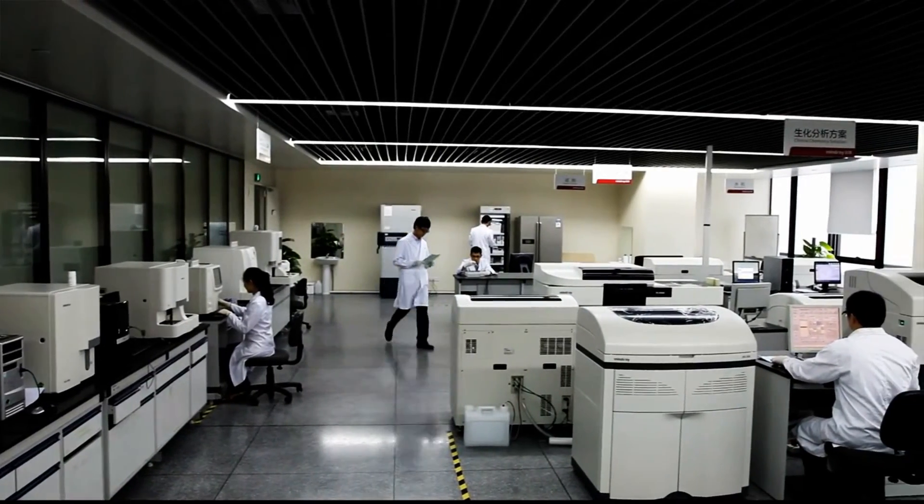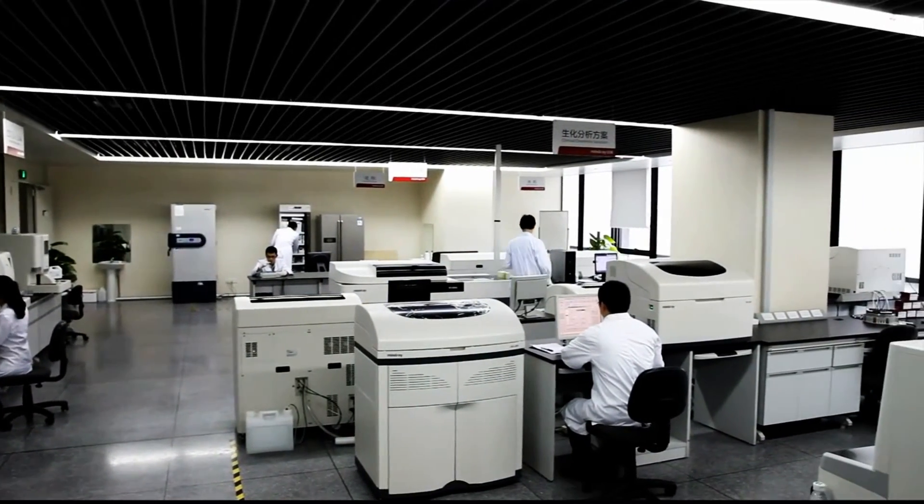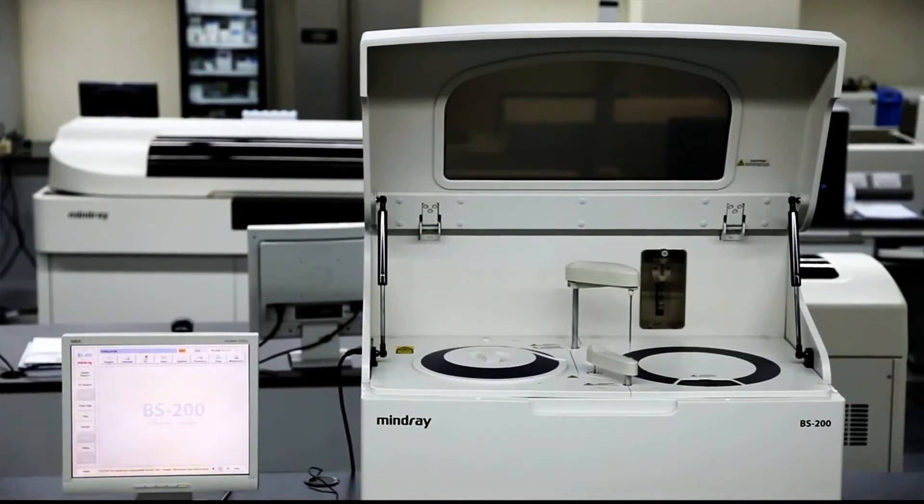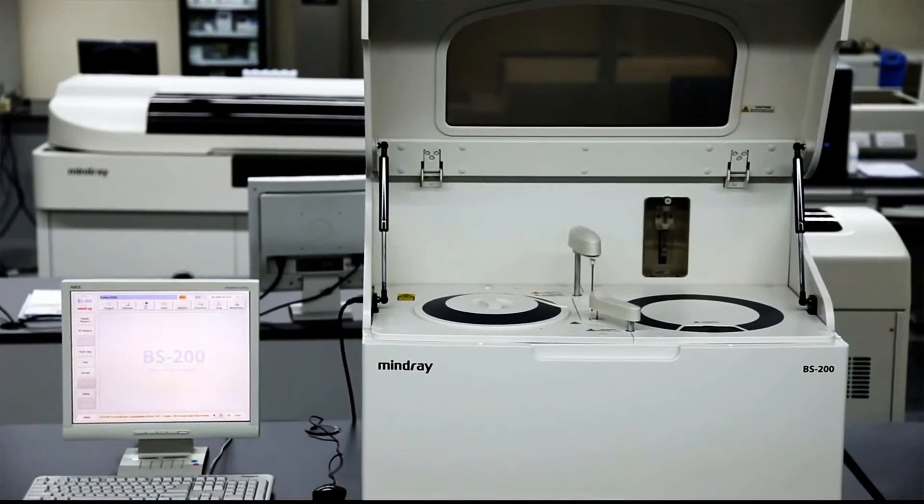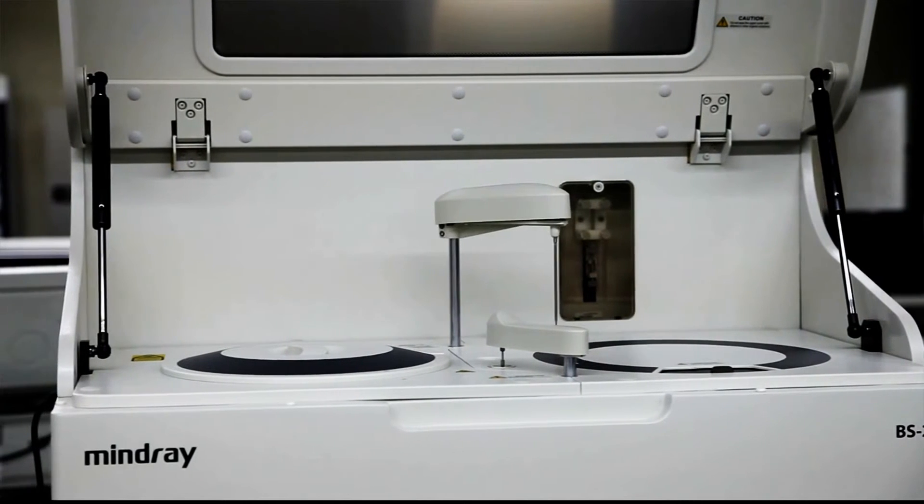Mindray is dedicated to providing the most reliable, most efficient, and hassle-free automated clinical analyzer for the clinical laboratory. The BS200 chemistry analyzer demonstrates Mindray's commitment to excellent instrument design and outstanding operational performance.